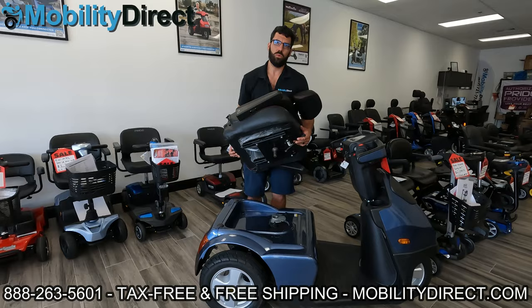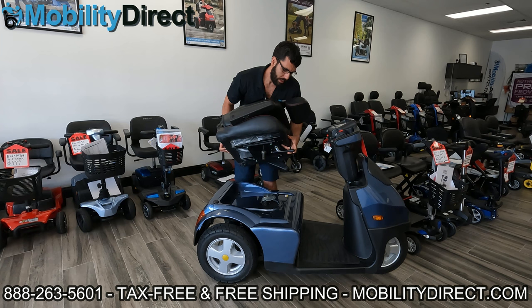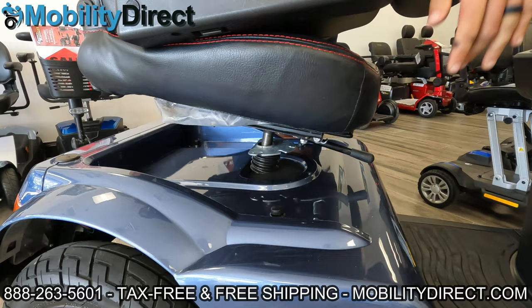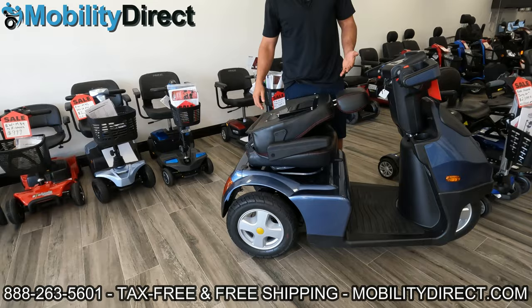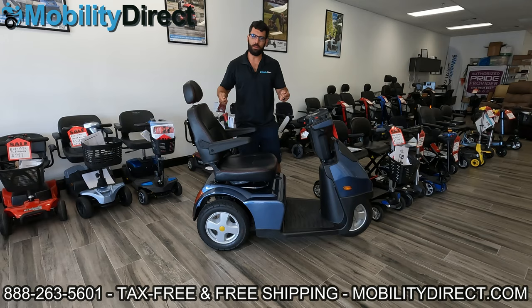I'm going to put the seat back on. If you have trouble with the seat not going on properly — let's say you put it on and for some reason the seat just rotates uncontrollably — I'm going to demonstrate that if you put the seat on without holding the lever up that you use to take it off, the same thing is going to happen. So I'm going to look for that connection point, let go of the lever, and let it drop in. What you can see now is that it's rotating. You have to engage that lever to lock it in. If you don't hold the lever up, depending on the model, it will not connect properly and the seat will rotate freely. So take the seat off, hold the lever, put it back in — that should solve it.